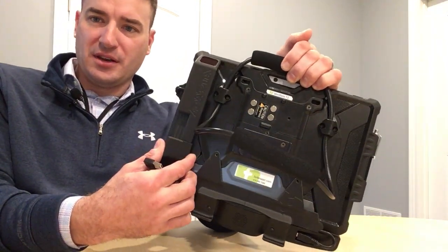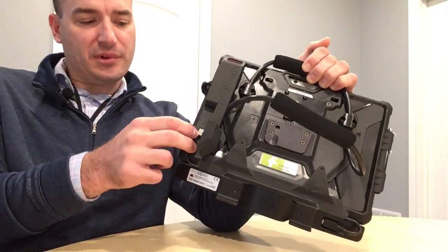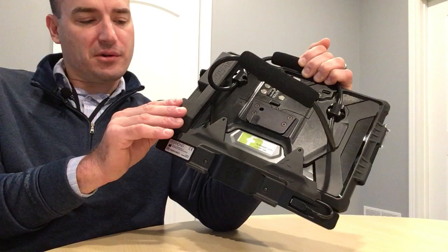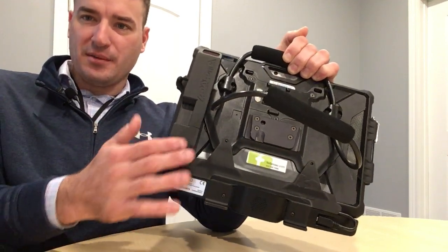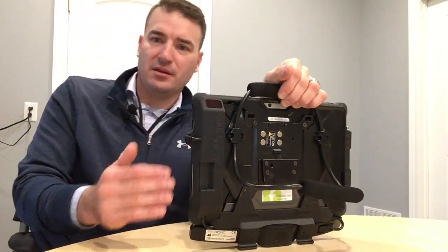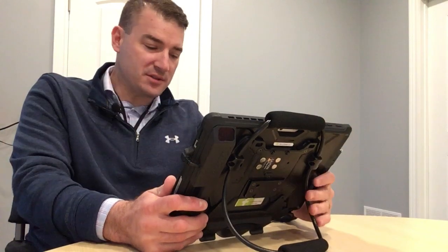So if I squeeze and pry upward, you can see there's a port in there that I can plug this into. And then this little secret door closes and snaps into place, and now my cable and my connection is totally protected. So it gives it the look of an integrated system, but still all of the benefits of a modular system.